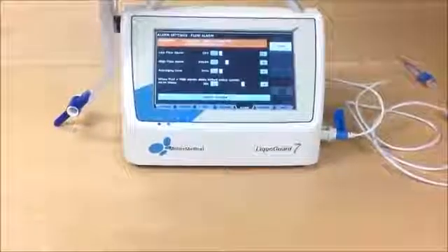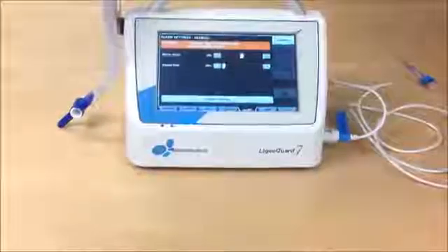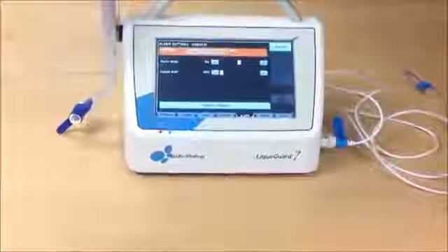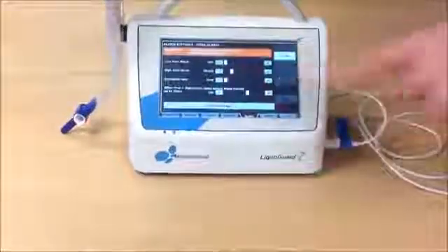So the machine waits 20 seconds for the alarm, and if nothing happens, it waits another 30 seconds to speed up the pump.